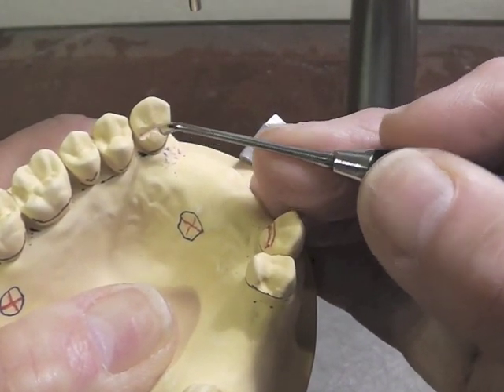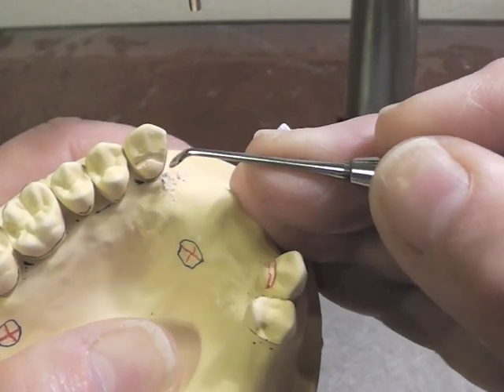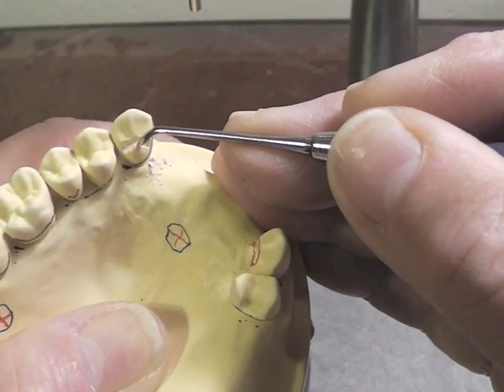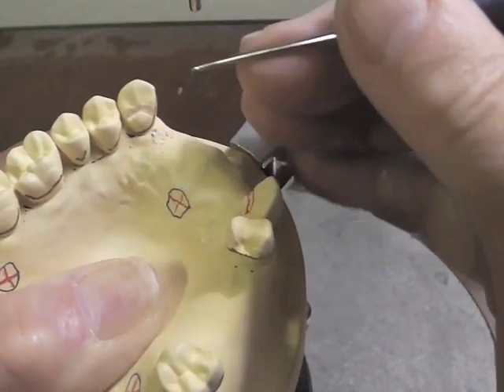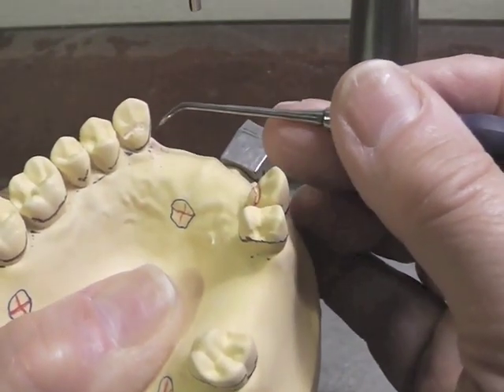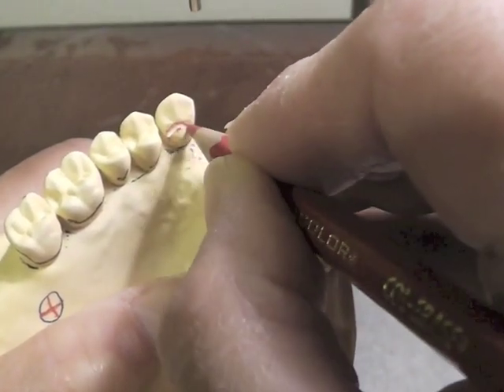We'd like to have about a one millimeter to one and a half millimeter ledge on this tooth. The point inside here is down — a positive seat — compared to right out here at the natural cingulum border. So we want something that's going to sit on that and not slip off. We do not want any undercuts in this area. That rest has to go right into place and not go into an undercut.